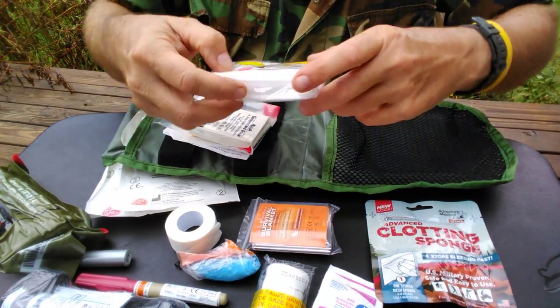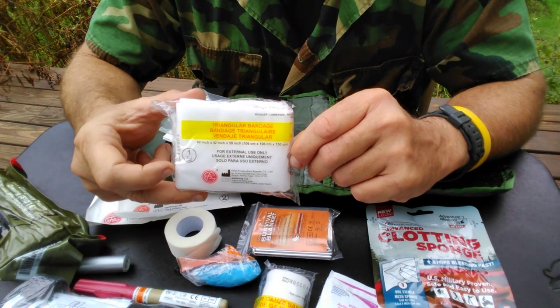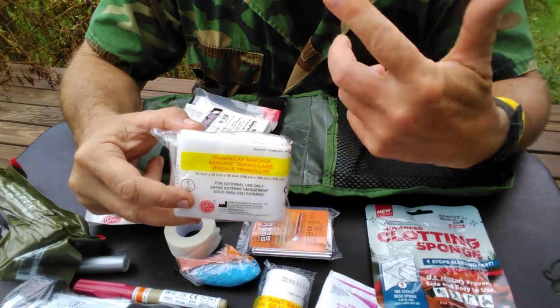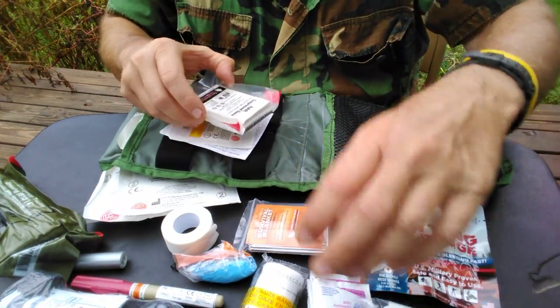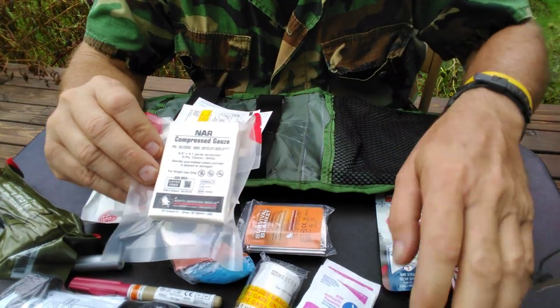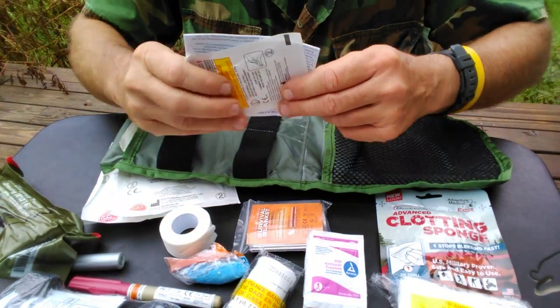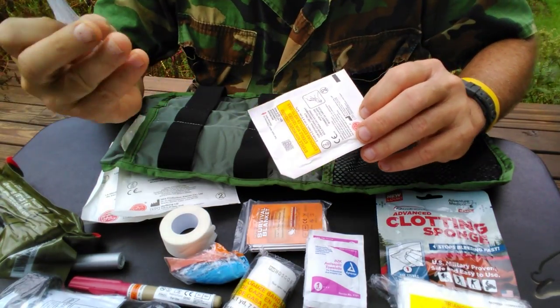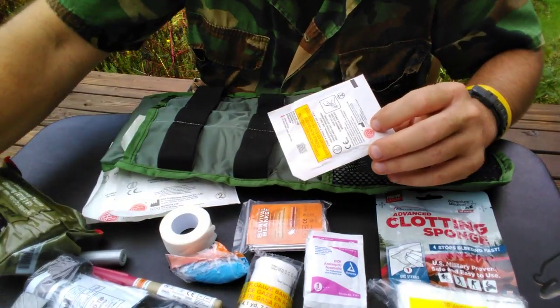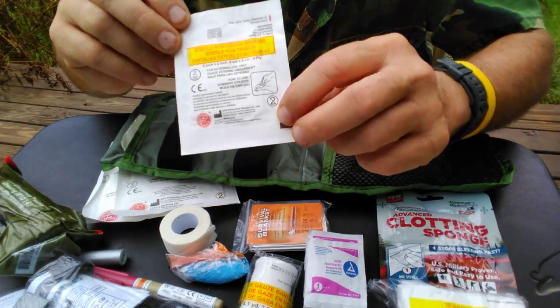You can see here, you can take care of gunshot wounds; you can take care of little wounds with this. Triangular bandage — a drive-on rag — for making slings, doing a head wound, things like that. Compressed gauze — this stuff is awesome; it opens up once it fills with liquid and just absorbs things. How-to-apply-a-tourniquet directions. You should read this and practice with this stuff before you use it. More little gauze.